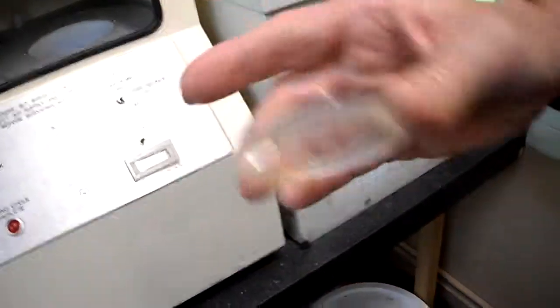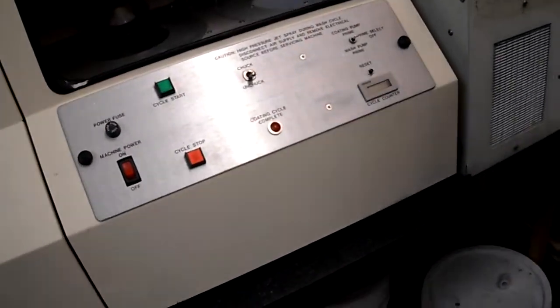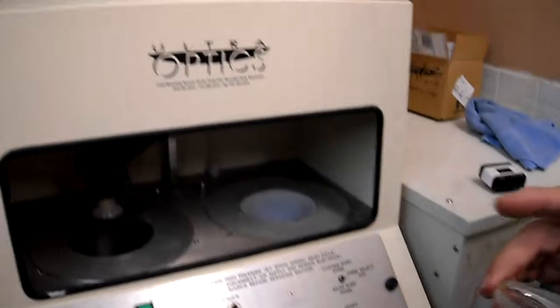It's hot already, it's warm. And it's hard as a rock, very hard. This is the best hard coat I've seen in a long time.